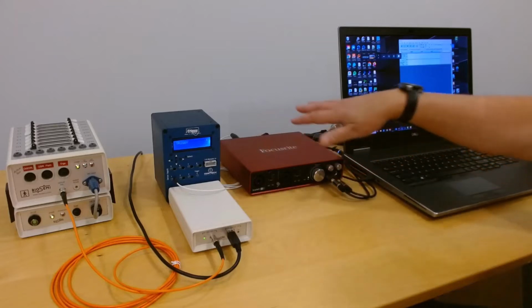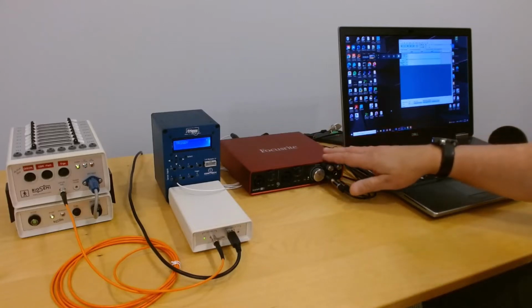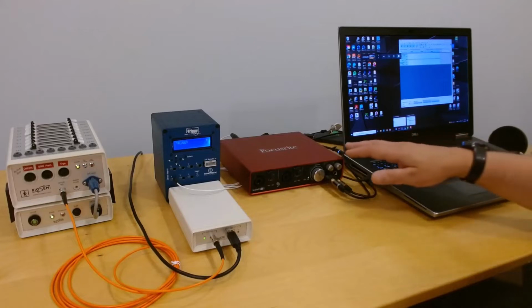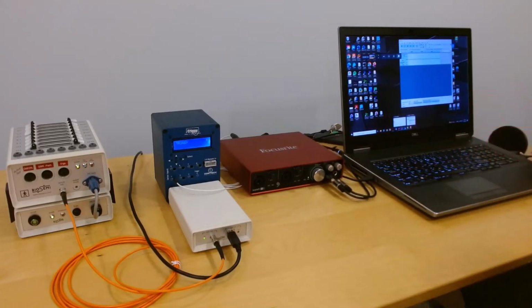At least within the context of all the sound channels, it's very accurate and its quality of sound output is very high. So let's look at how those sound channels relate to trigger outputs from the trigger port.